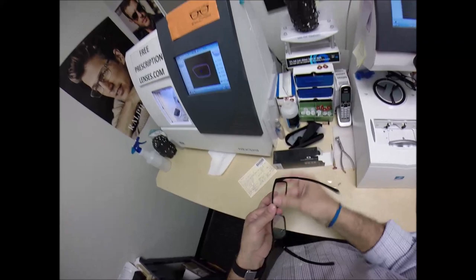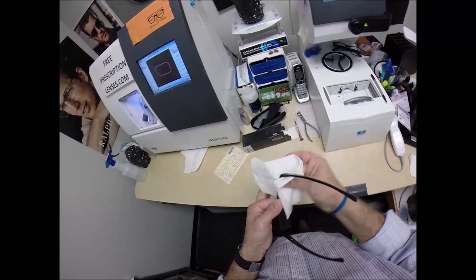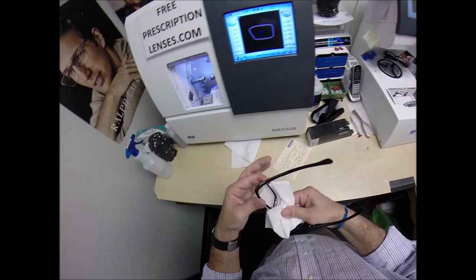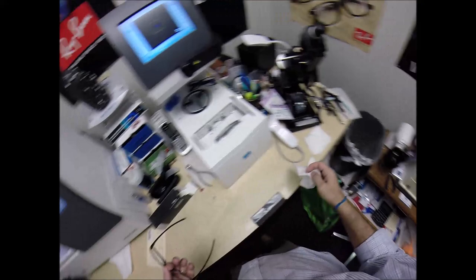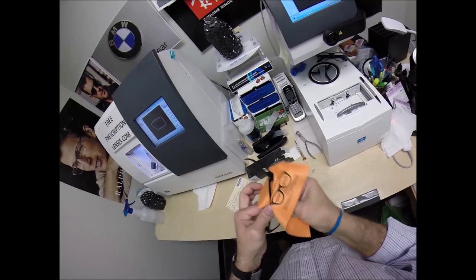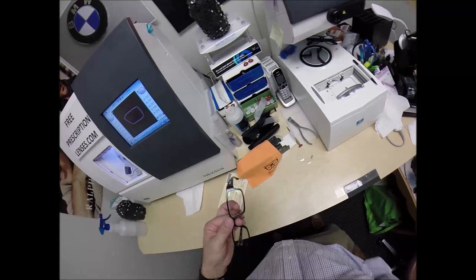I've been in this business for 21 years, I've never seen a pair of glasses that are like that. But Oakley's are amazing where they almost need no adjustments whatsoever. But I'm still going to finish to make sure they're in standard alignment. Press down, there is no wobble. Close each temple to make sure they overlap perfectly and they do that, neither temple is askew like that, they both overlap evenly. So let me clean these a little better. But I send out a selfie request in every package to have your picture on the website. David I would love to have your picture on there representing Wesley Chapel Florida. You threw me a bone with the video, throw me another bone with the selfie.